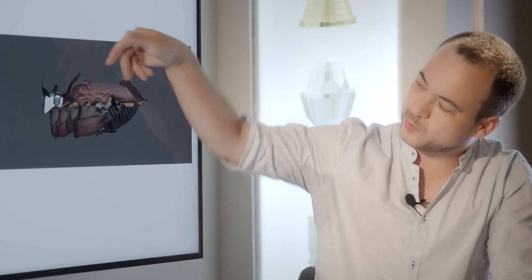Today we'll discuss a case where we don't have enough space because of two things. The first is the position of the implants, and the second is because of the teeth — we don't have enough space between the gingiva and the antagonist teeth. The implants were made with a surgical guide and the positioning was very palatal. Because of the position of the implants, you can see there isn't enough space between the implant and the antagonist, and in the buccal area you have enough space, but for the abutment itself you don't have enough space to position and make the crown.